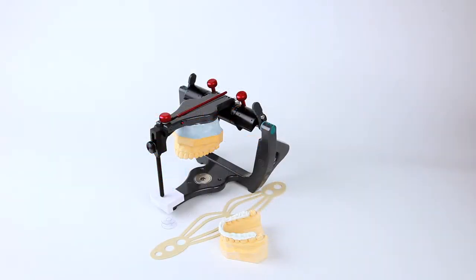As you can see from the armamentarium pictured here, there is no need for flame or heat for melting wax, crazy glue, and sticks or paper clips or other items, therefore keeping the setup simple and safe.